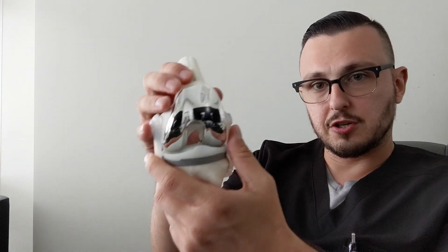So historically, these have been done with different instrumentation, different jigs that are available to place the cuts and the rotation and get the proper sizing of your implant. Relatively newer technology, such as robotic-assisted surgery, has been made available.